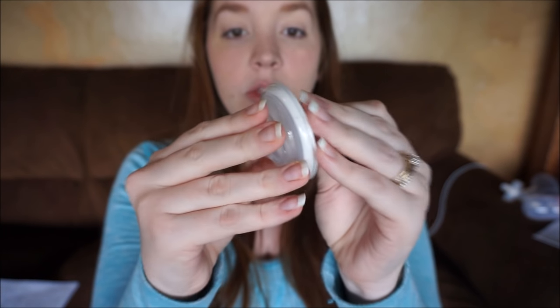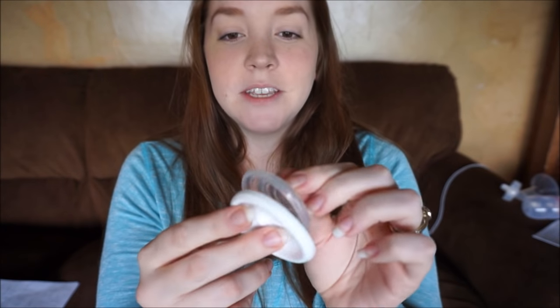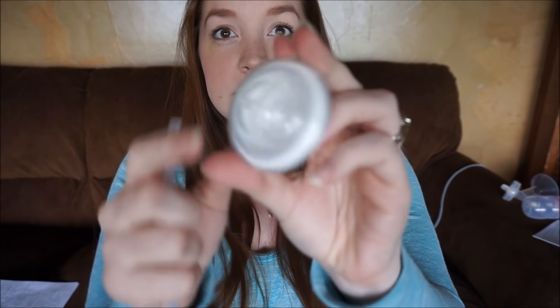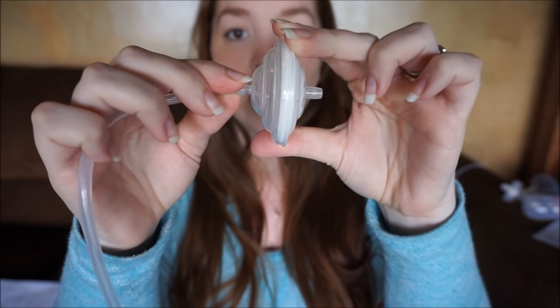The backflow protectors are three parts: there's this front part, and there's a membrane inside the third part. You just put them together, which is super simple. I can do it in the middle of the night half asleep. You slip it onto your tubing with the skinniest end — there's a skinnier and a slightly larger piece — and you put the skinny part right into the tubing.